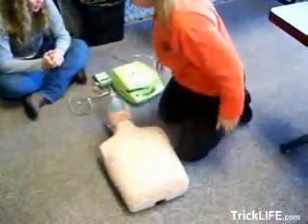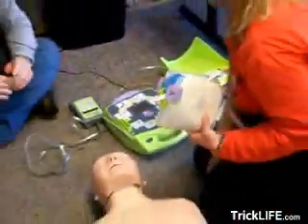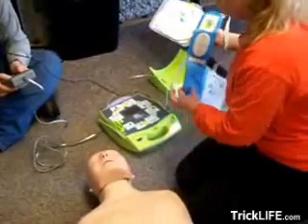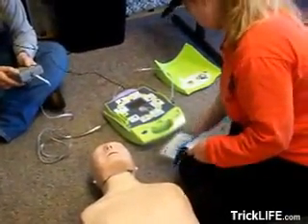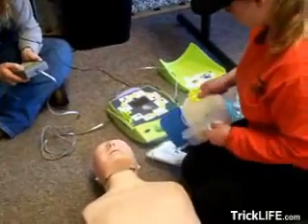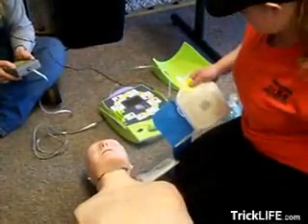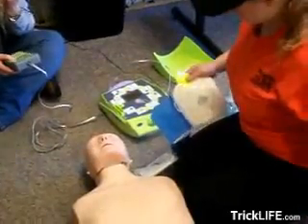It says to stop as soon as the AED arrives. The AED unit says: stay calm, check responsiveness, call for help, stay calm, check responsiveness, call for help, open airway, check breathing. Give two breaths — and you did that.